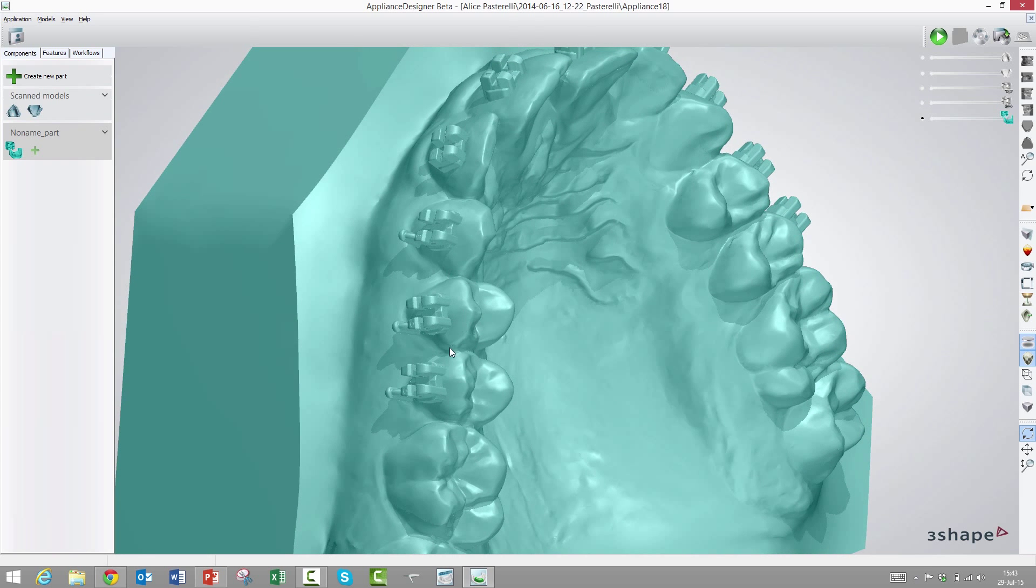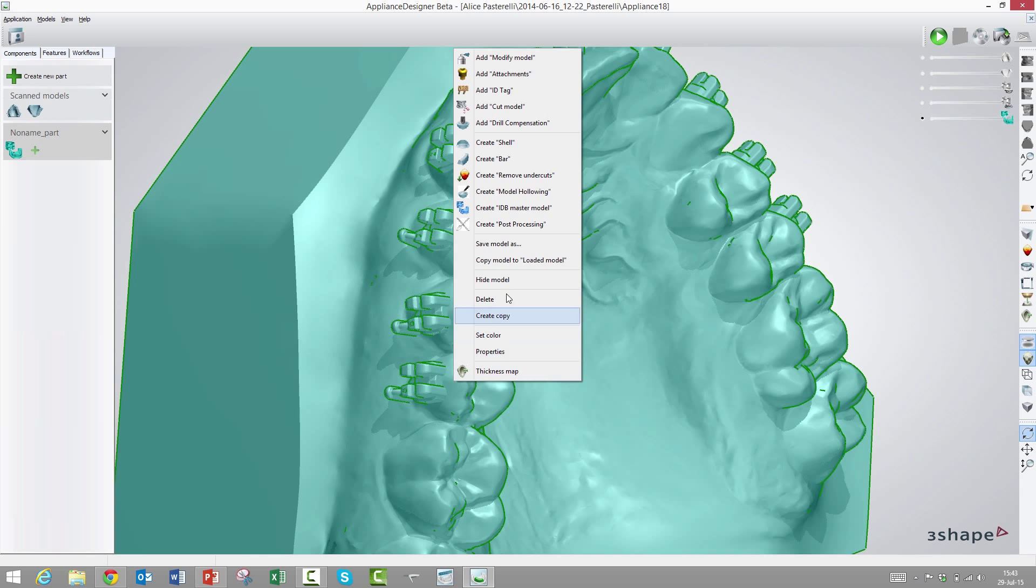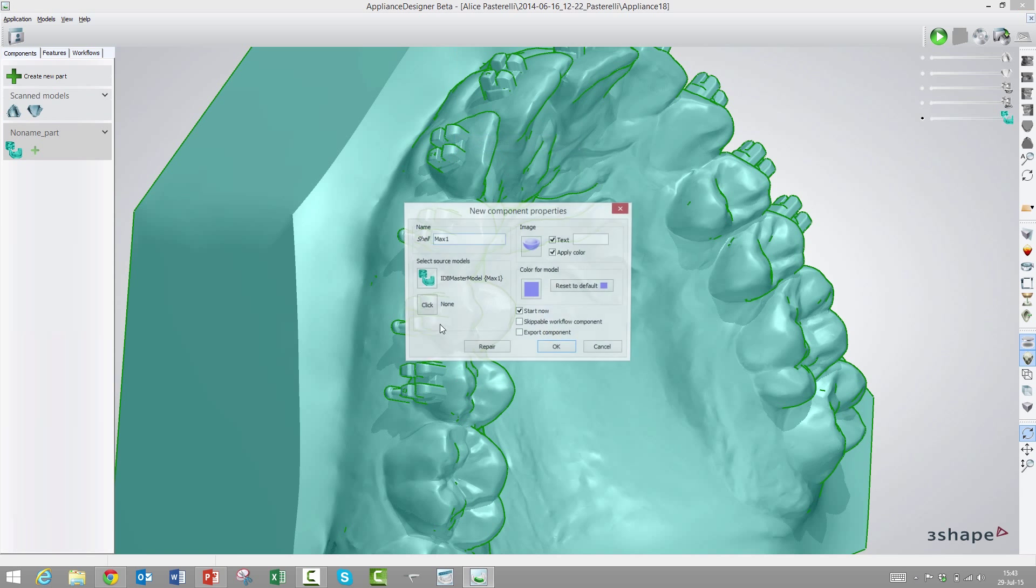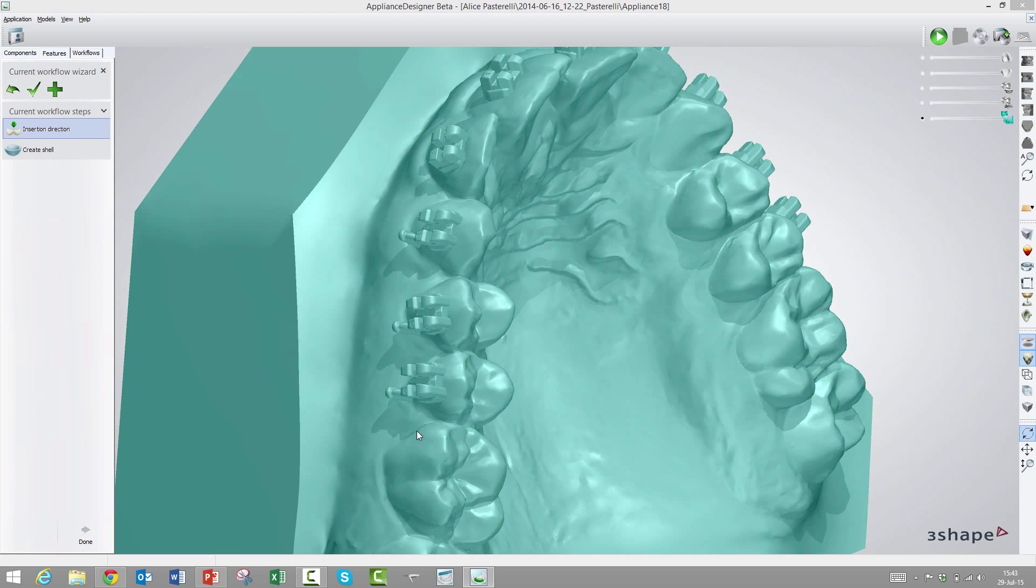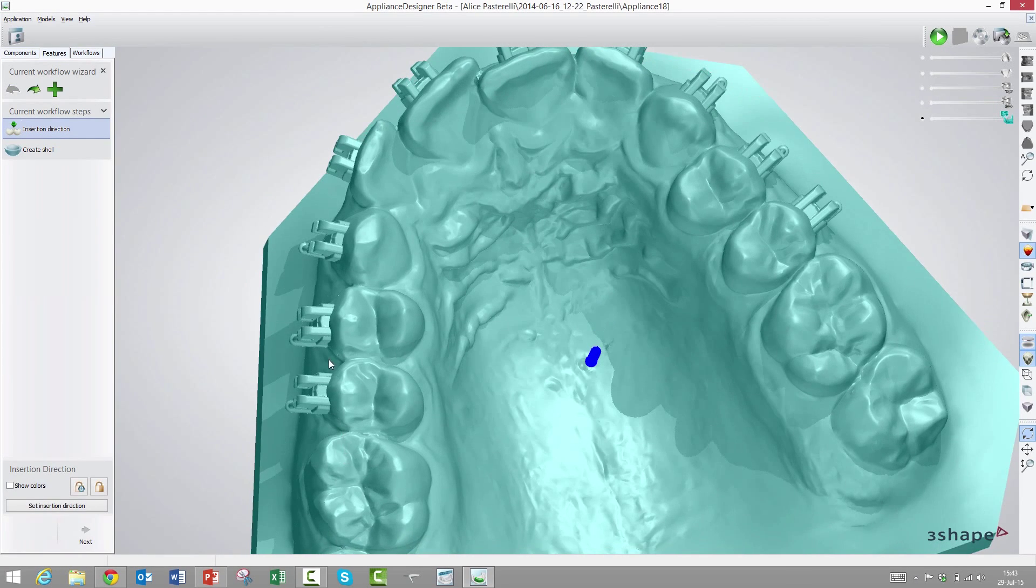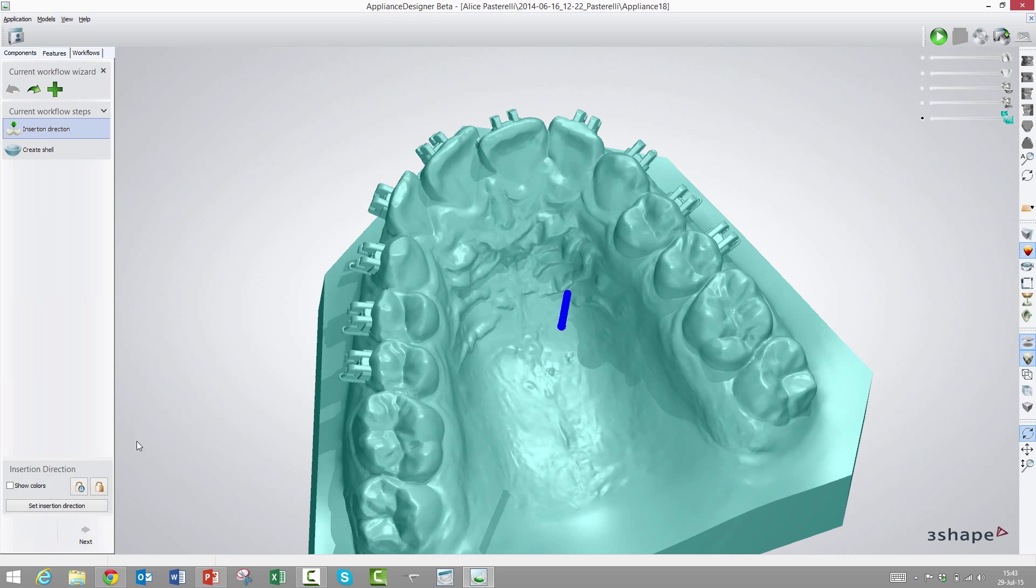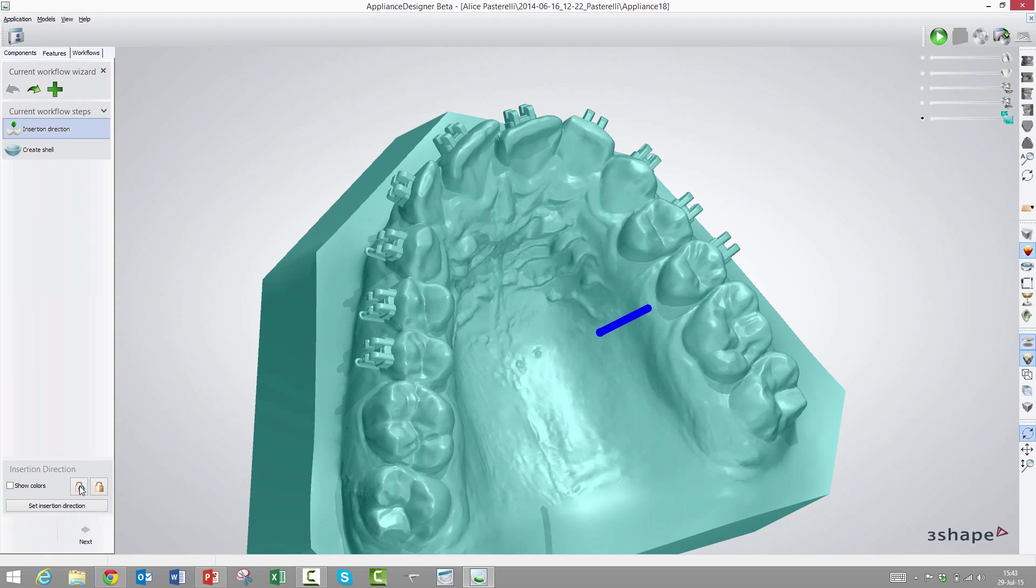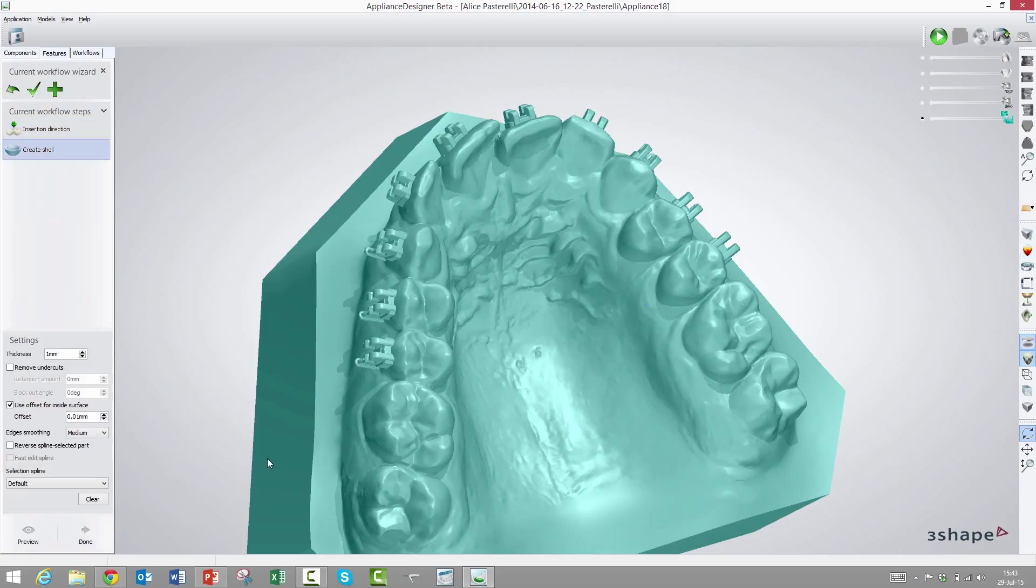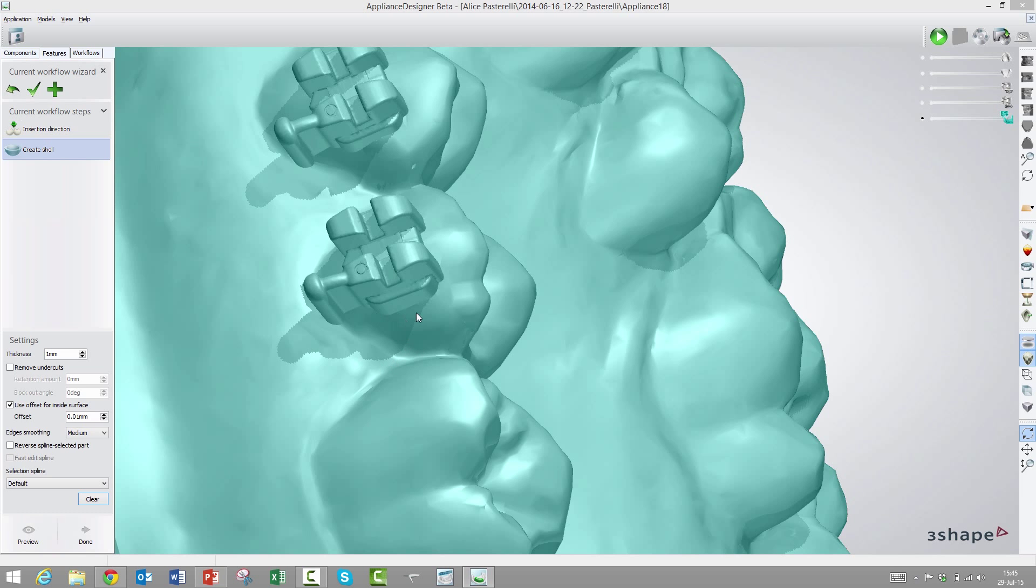Let's make this directly printed transfer tray. We still need this model, but only as a basis to design the transfer tray on top of. We will right-click and choose create shell. Now we choose the insert direction. That's not the insert direction for the individual brackets, that's the insert direction for the overall transfer tray. This looks fine, but we could adjust it if we wanted to set a different camera angle.